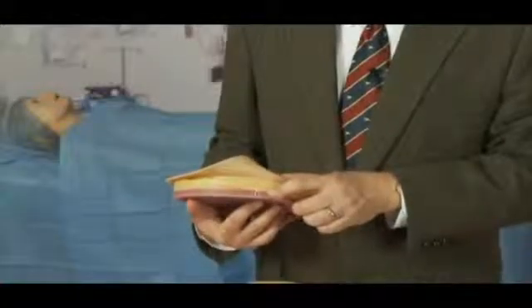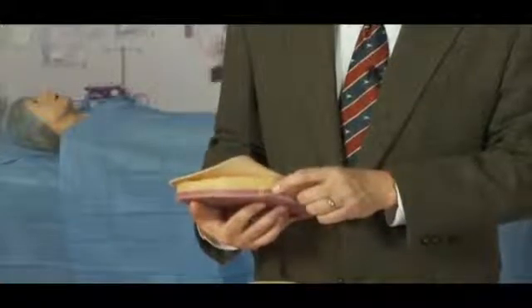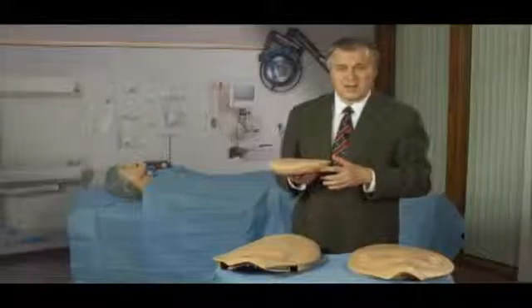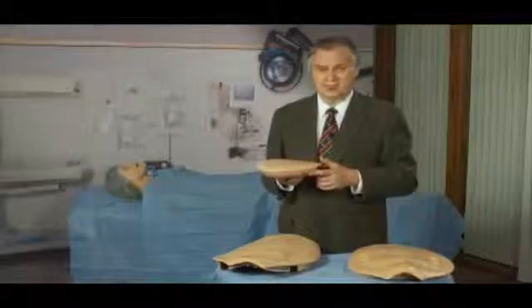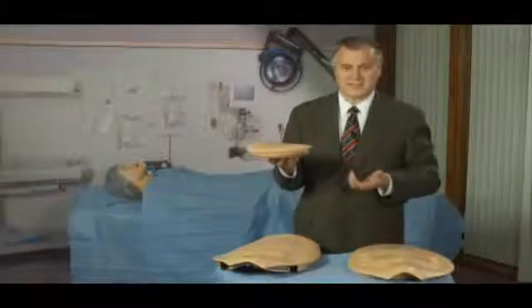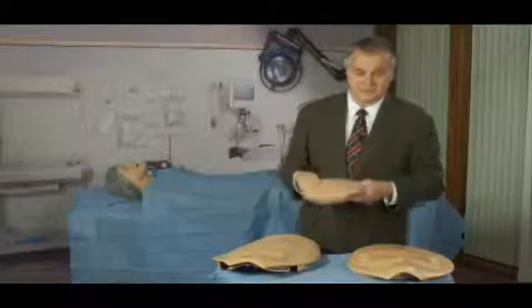Under the subcutaneous tissue, of course, is the fascia. This fascia is designed so that a realistic fascial incision can be made. Of course, you've got rectus bellies. They're separated just like rectus bellies in a real surgical case. And underneath that's the peritoneum, which of course has to be carefully entered so that any intraperitoneal contents are not injured.